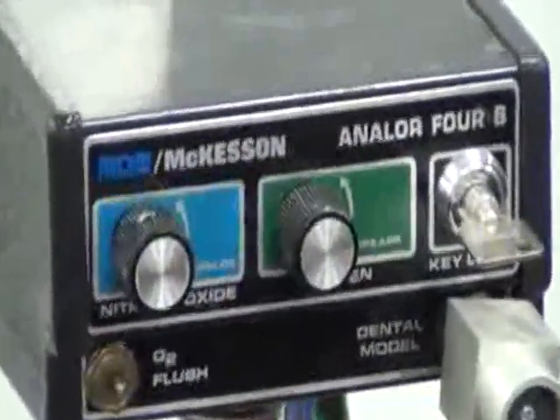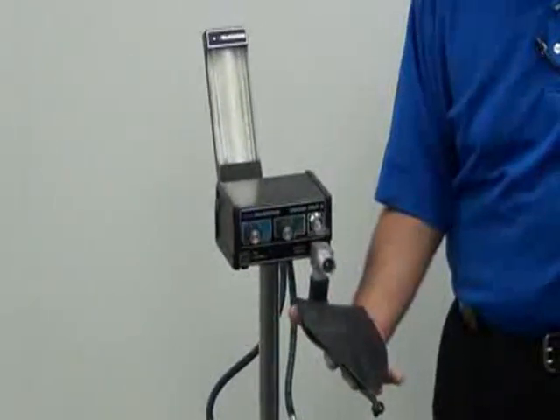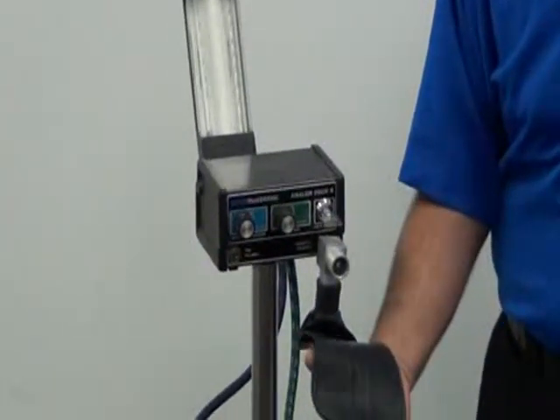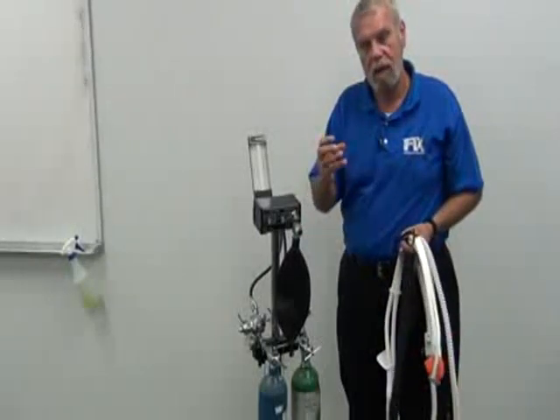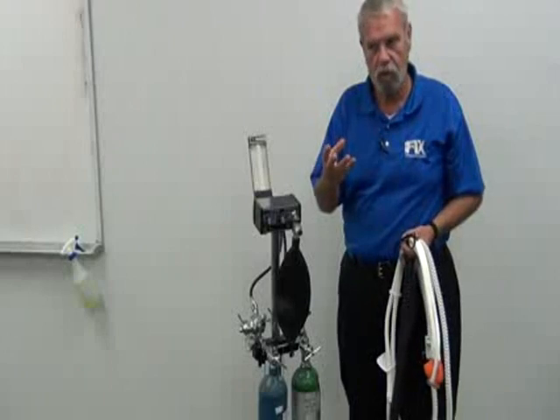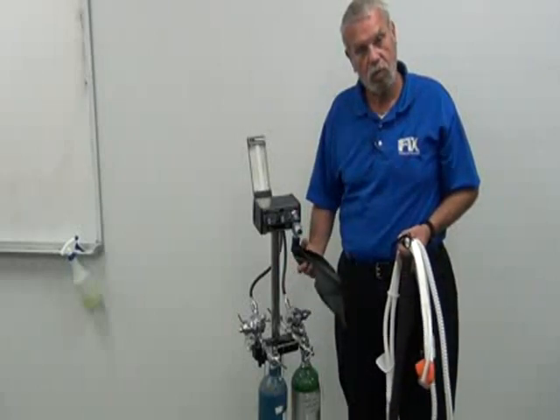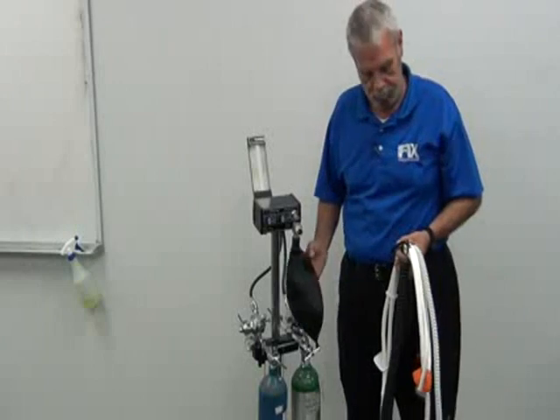Off of this we have a bag tee. For obvious reasons, this is called a breathing bag. Breathing bags are available in 1 liter or 2 liter sizes. All the breathing bag does is, as the bag expands and contracts during the procedure, you have an easy guide to look over to make sure that the patient is still respirating or breathing. The bag contracts and expands with the patient's breath. It's called a breathing bag. It's a very important part.